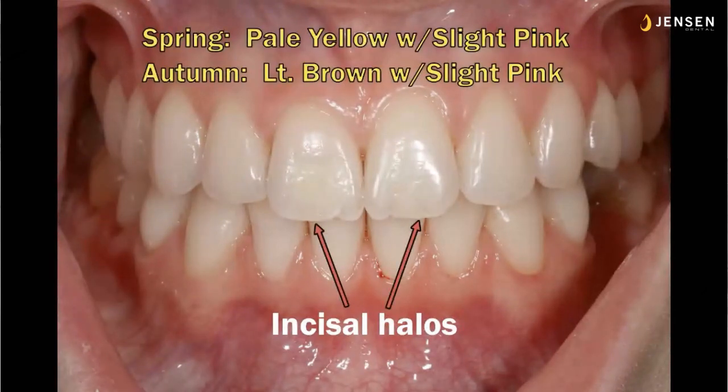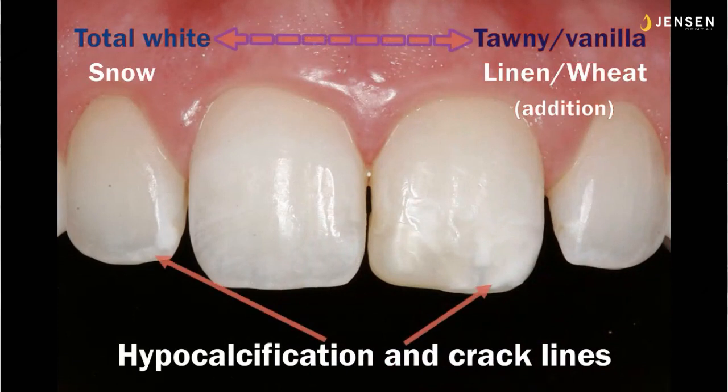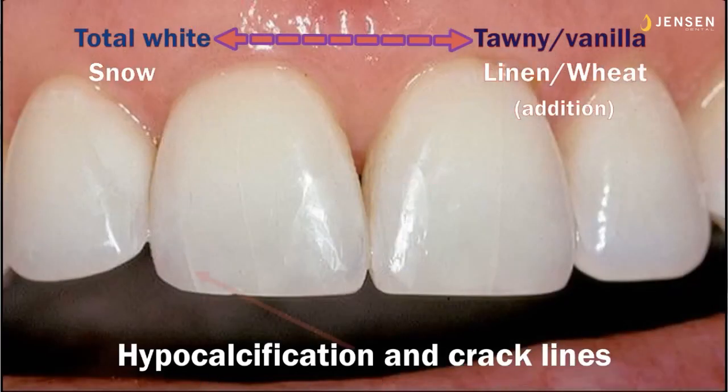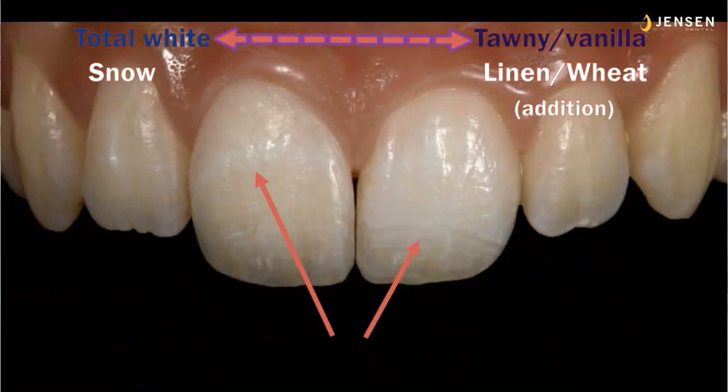For incisal halos, we have spring and autumn. Spring's kind of a pastel, and autumn's kind of a light, burnt leaf color, but they're great for the colors we have. If you have hypocalcification and crack lines, snow's total white. So if you have a real dark or real deep white hypocalcification, use more snow. But if it's kind of a subtle one, then I normally mix a little bit of linen or wheat in with the snow, usually about 3 to 4 parts of linen or wheat, to tame the snow down a little bit, because snow gets a little crazy.